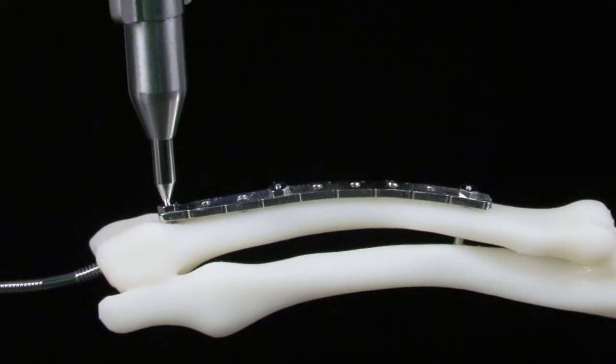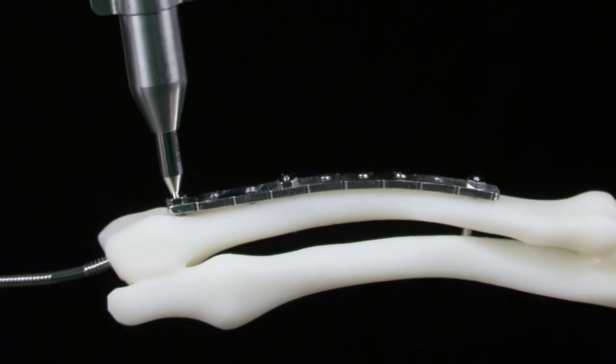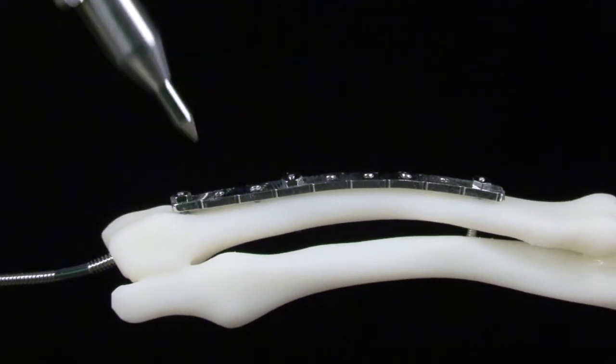When using the 1.6 implant set, the rock off method is the only reliable shaft removal option.